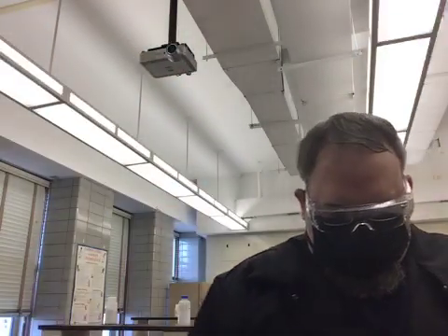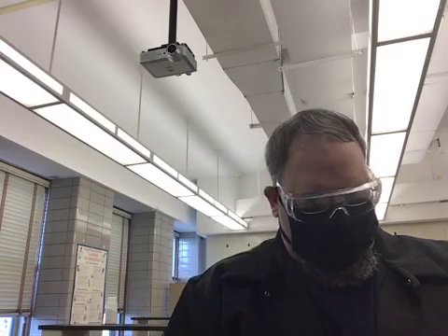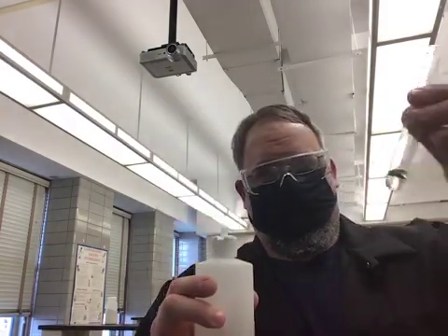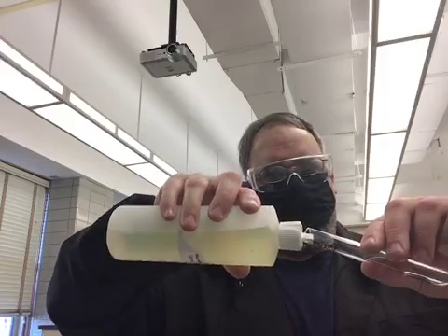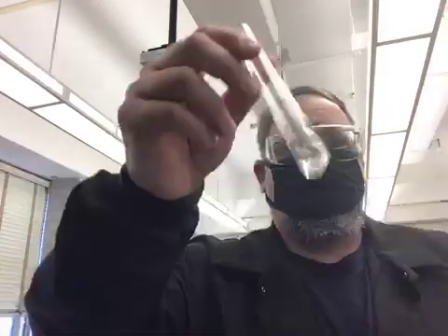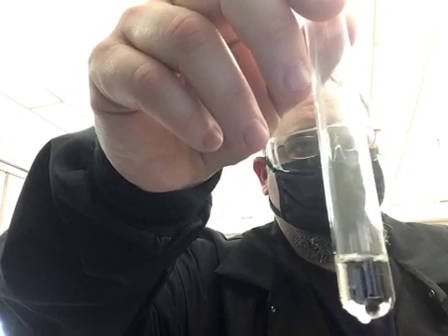All right. So with that being said, let's add some normal urine to a test tube with some nitric acid, a couple drops. Shake that up. There's our result.